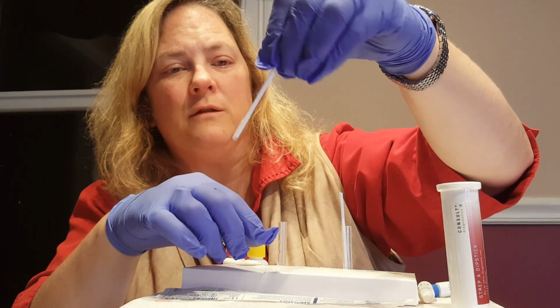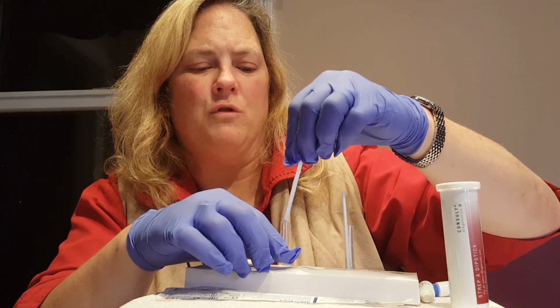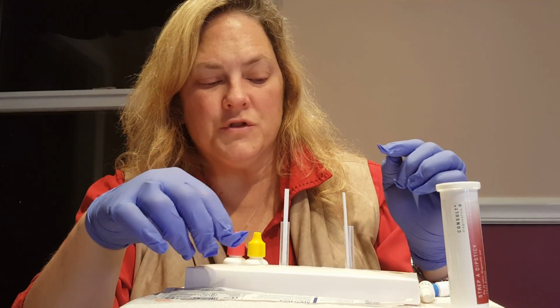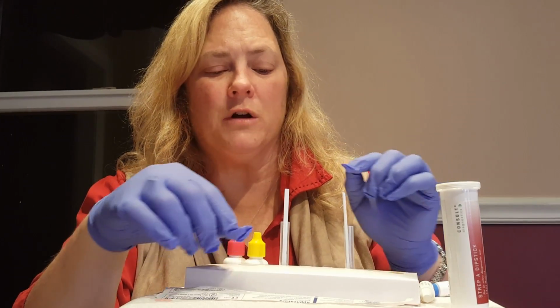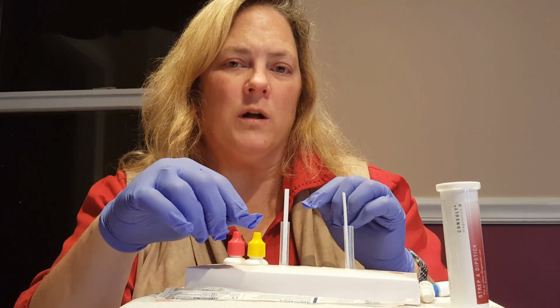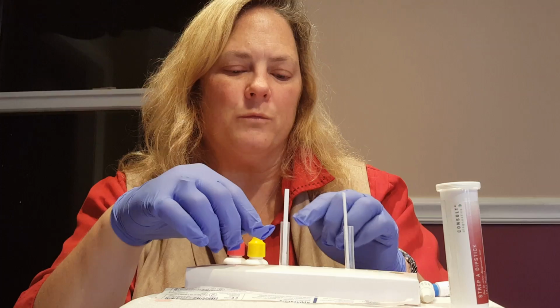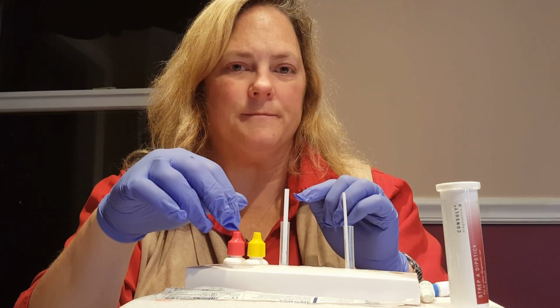Okay, so again, there's a control line there, indicates the test is valid, but no other line. So on the log, in the patient's testing log, you would also record the presence of the control line to indicate that there was a quality control, internal quality control performed with this test, and that it was a valid test.